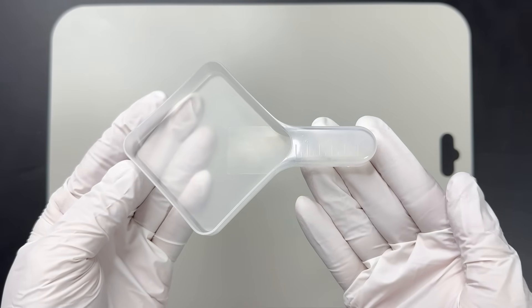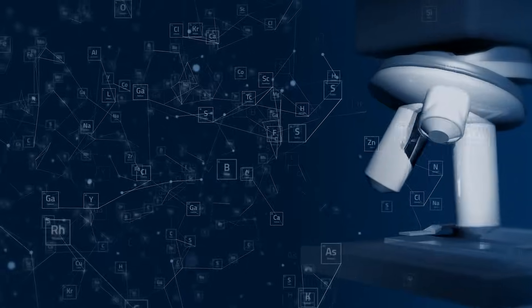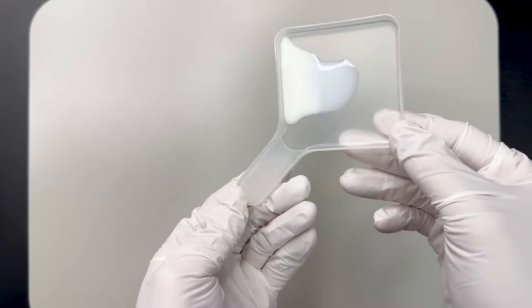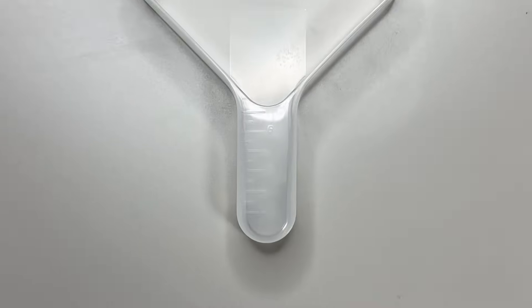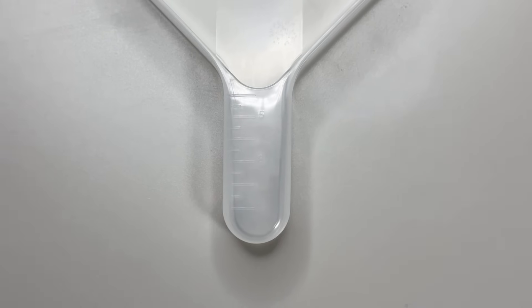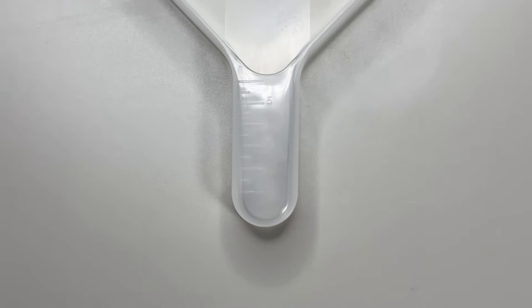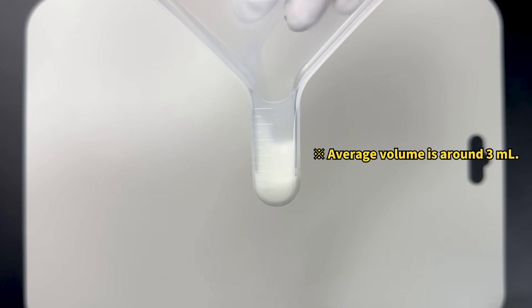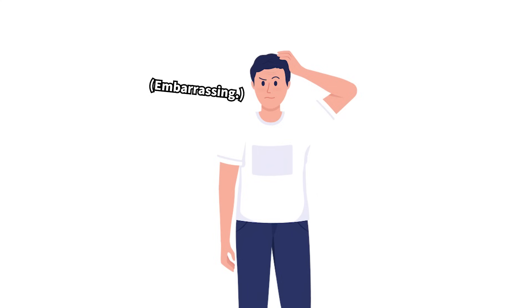All you have to do is collect the semen. We collected the semen scientifically and put it into the container. There's a scale at the bottom of the container to measure the amount of semen collected — if it's more than 1.5 milliliters, it's considered within the normal range. Mine was, well, not enough.